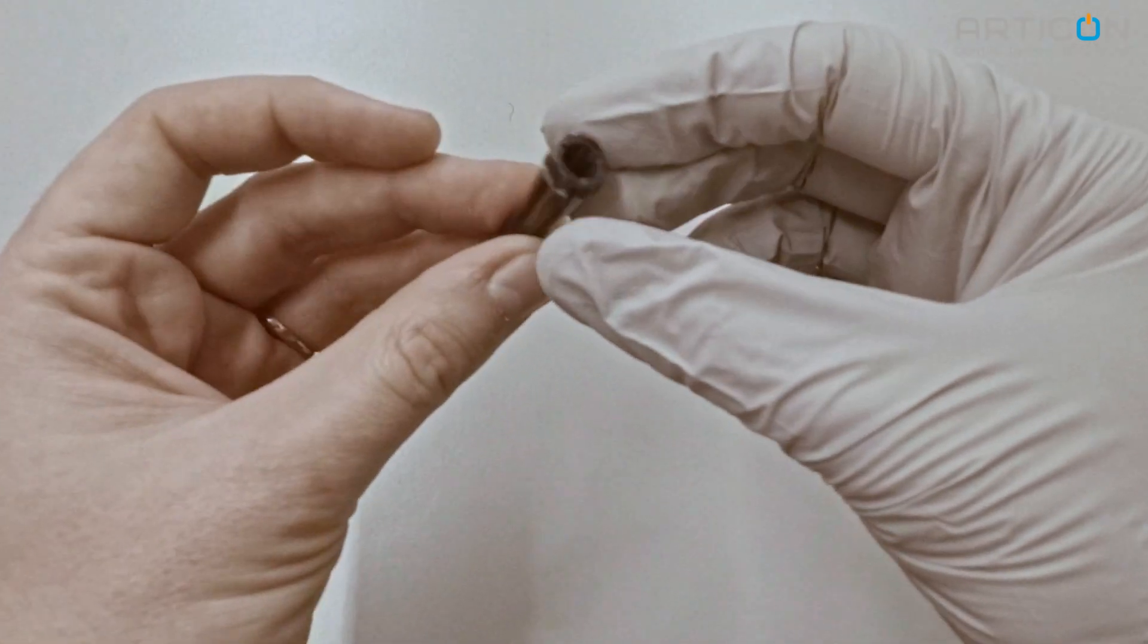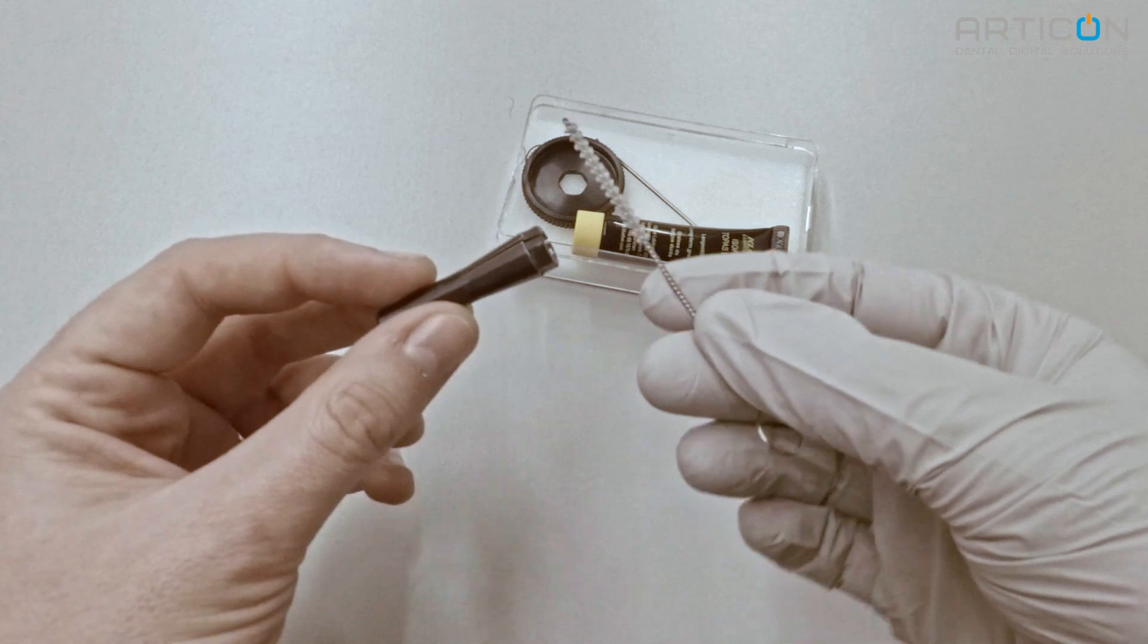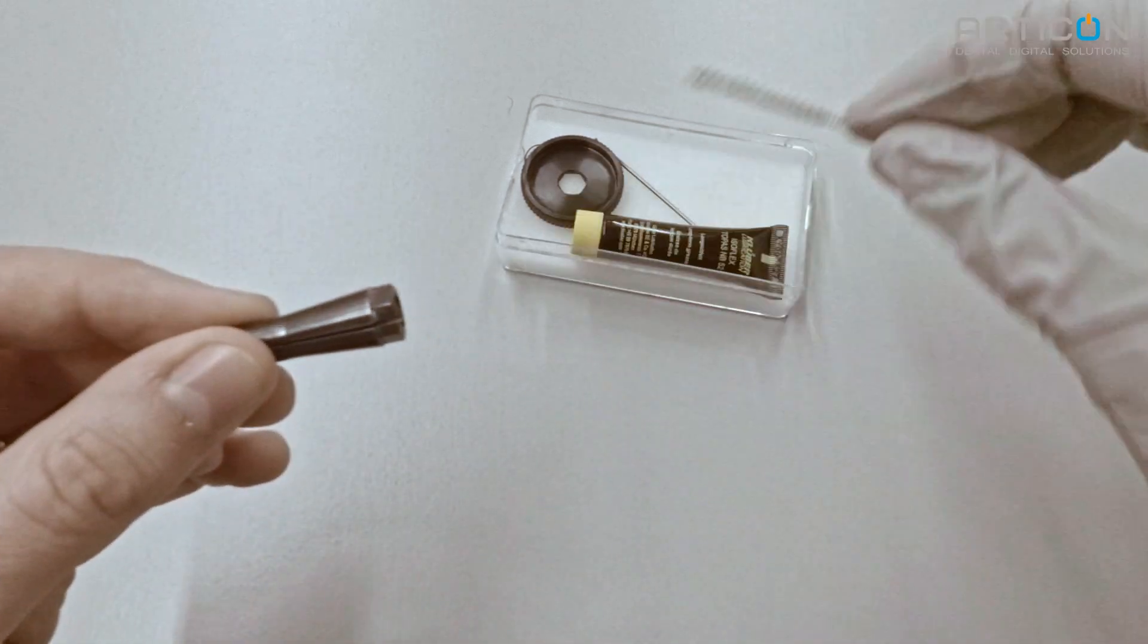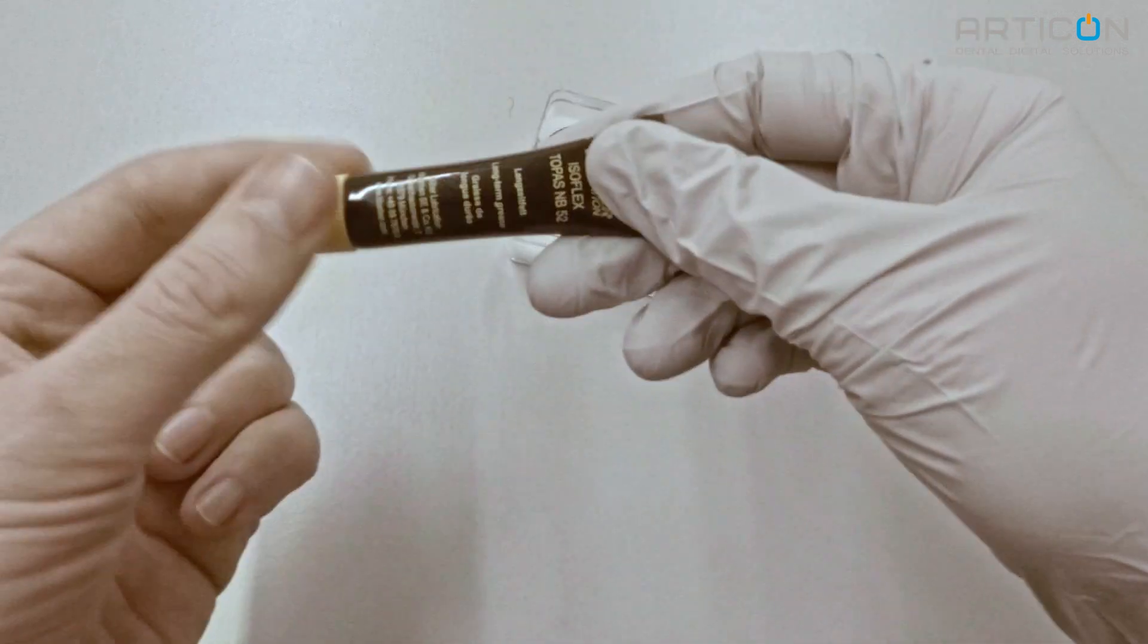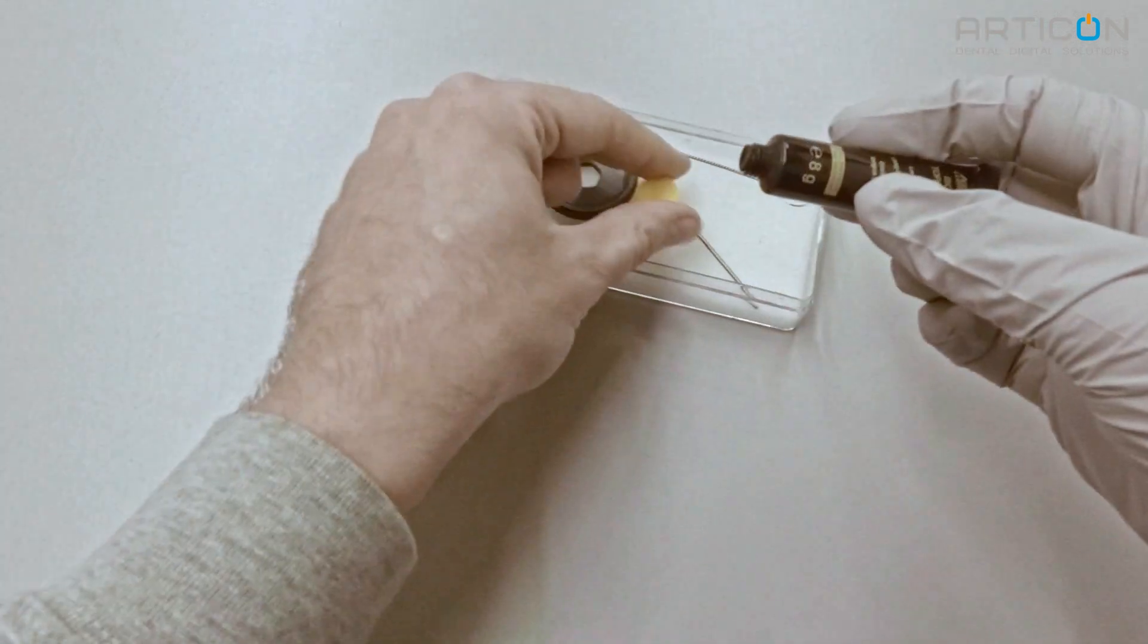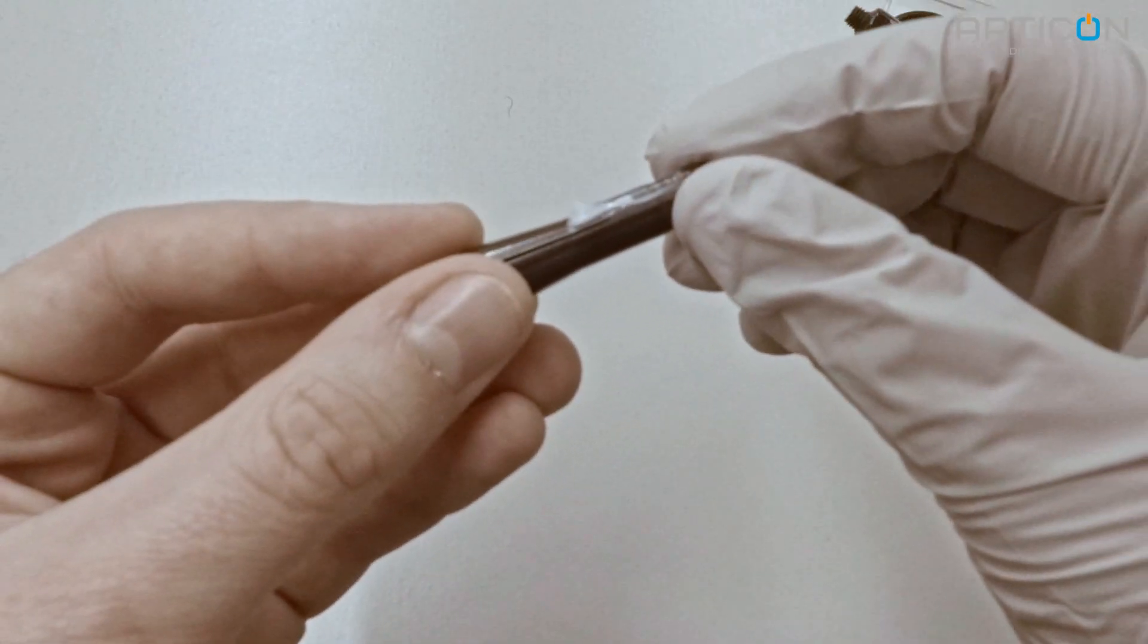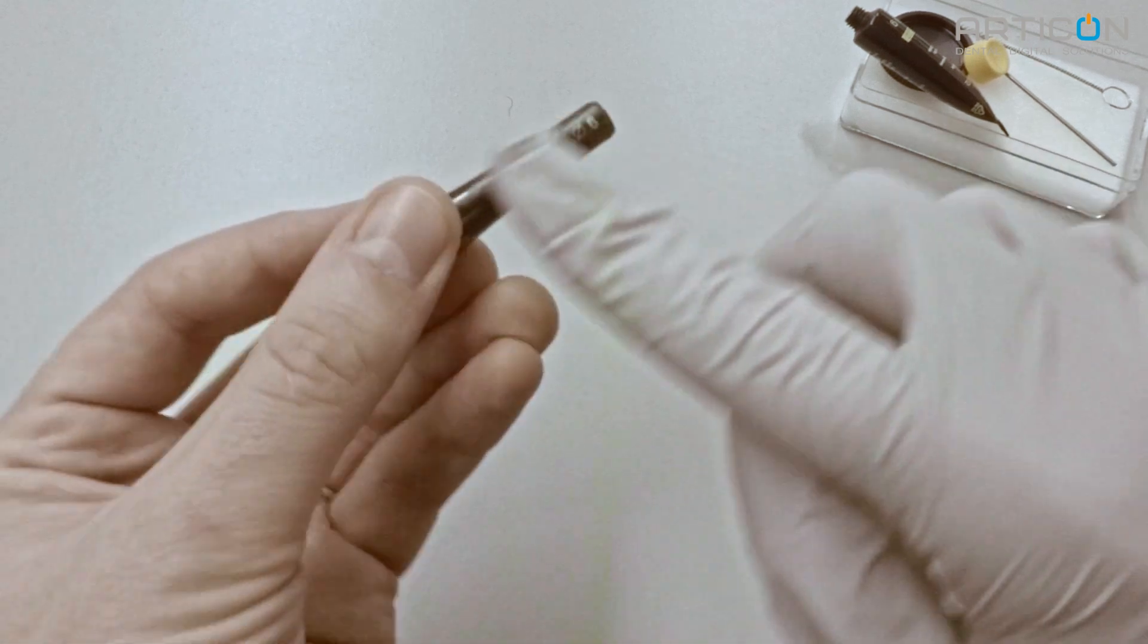Inspect the collet and clean it with the brush. Make sure that no dirt left in the collet. Apply a small amount of lubricant to the outer surface of the collet. Avoid direct contact of the lubricant with your skin.